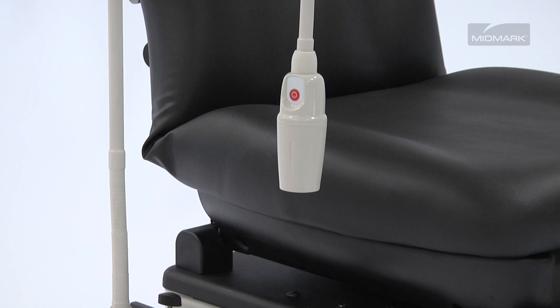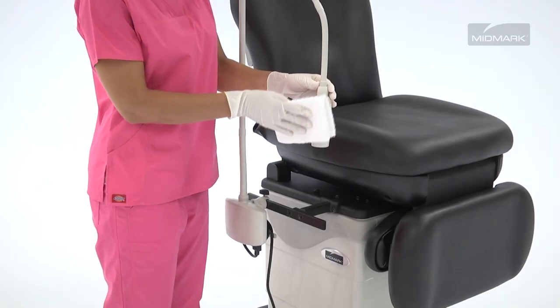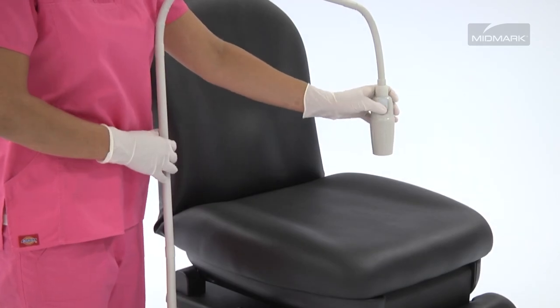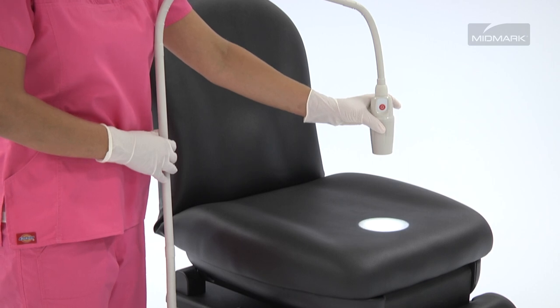The 253's revolutionary light head design is created to be fluid and debris-resistant. To turn on, simply press the ergonomic power switch located on the light head. To adjust the size of your desired focal spot, twist the lower part of the head.